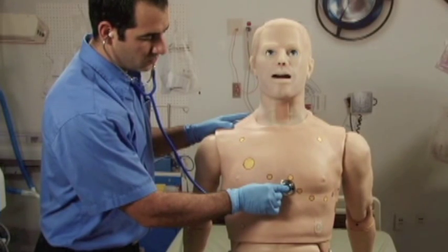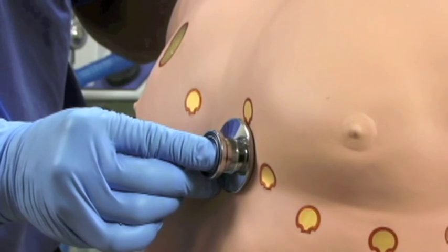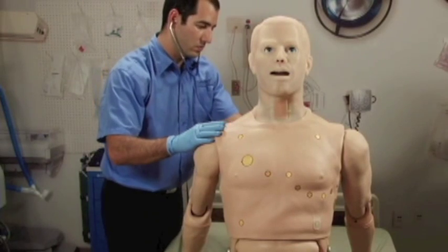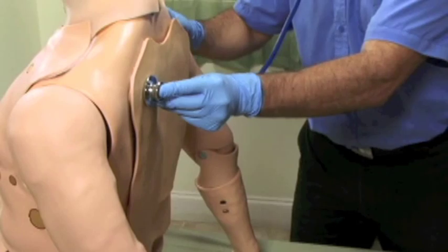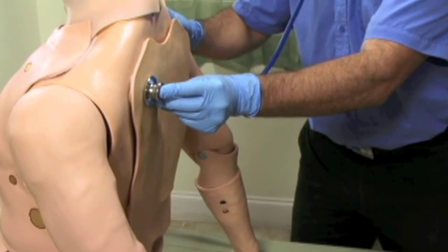The sounds can be auscultated anteriorly or posteriorly. Multiple sounds are available.